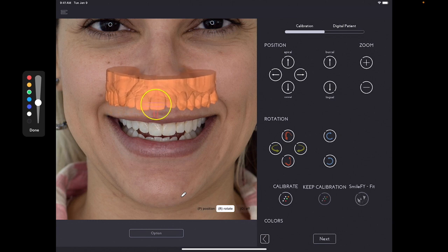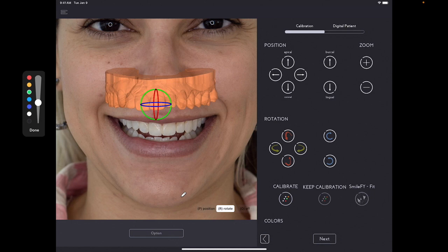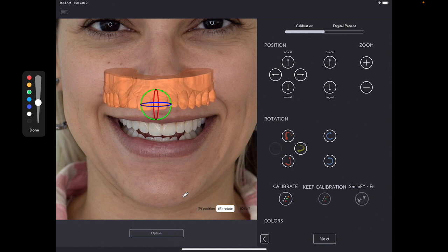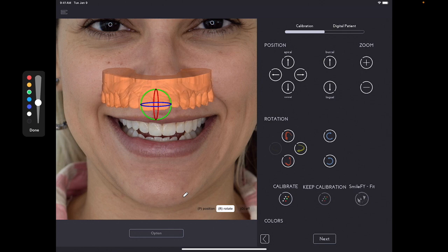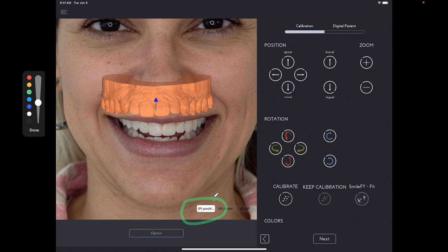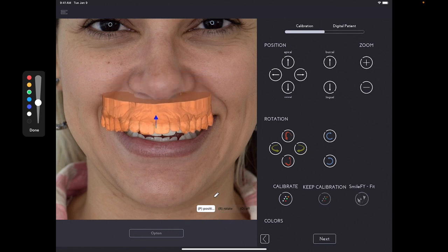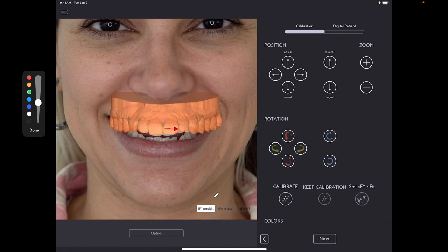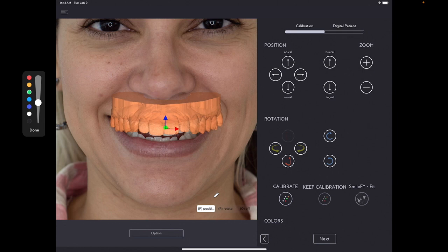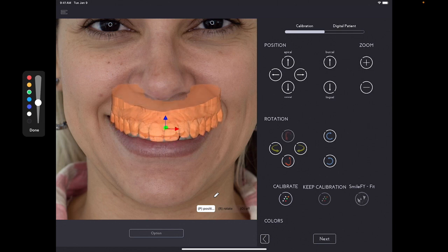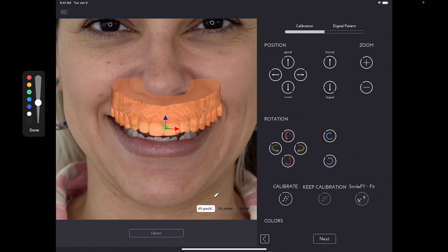So green, for example, as you can see, it goes sideways. Blue turns to the left or right. And then here under position, which is this one, you can bring it up, down, left or right.